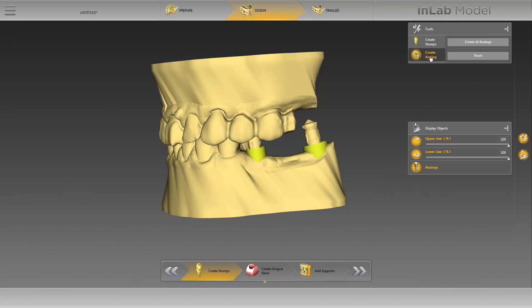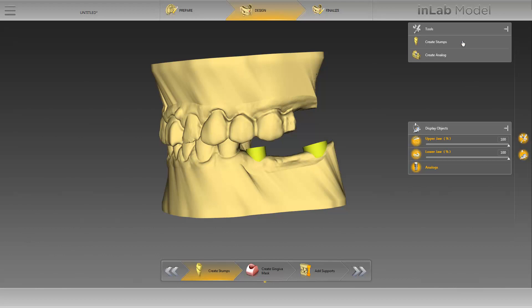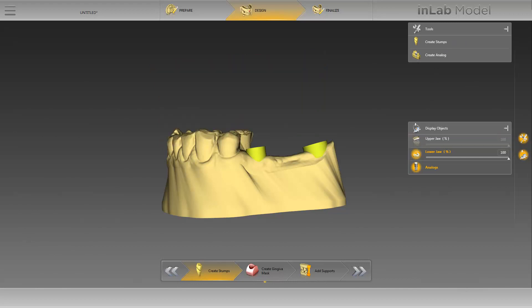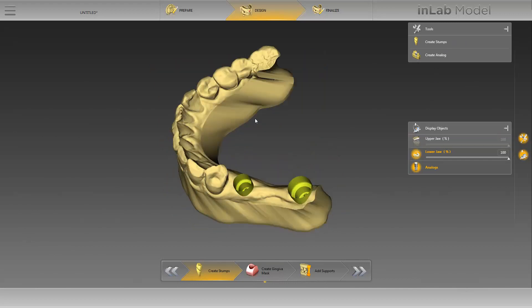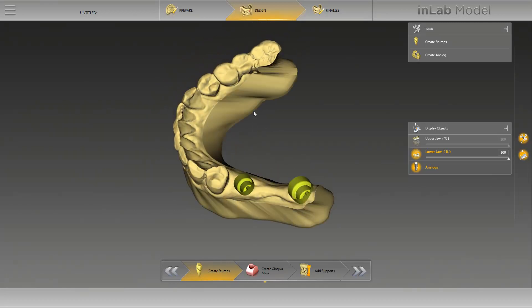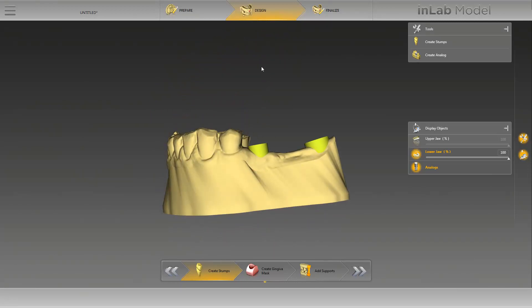To calculate the analogues, we click on Create All Analogues. To review them, we deactivate the upper jaw under Display Objects. Now you have a clear view on the interlocks of the implant analogues. Clicking on one of the analogues allows you to adjust the spacer for the fit of the analog in the model.